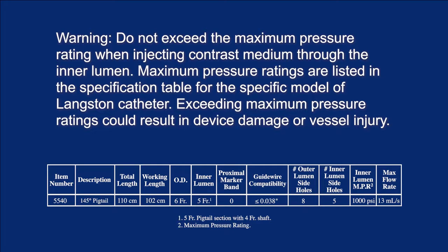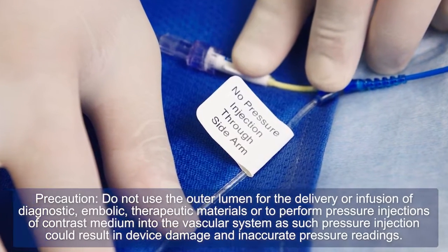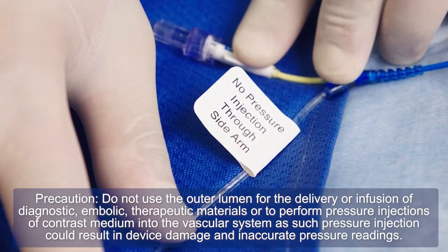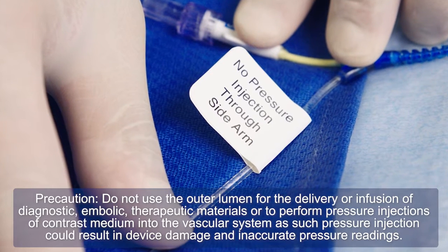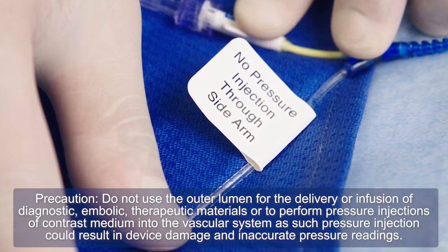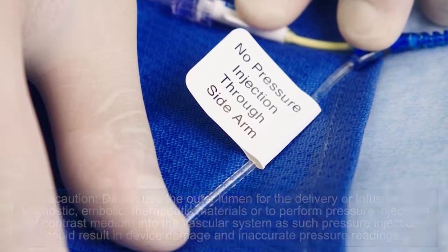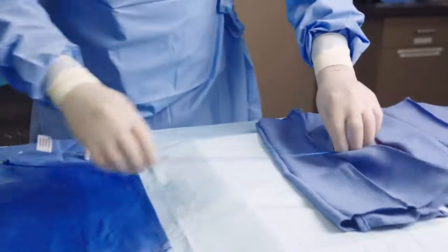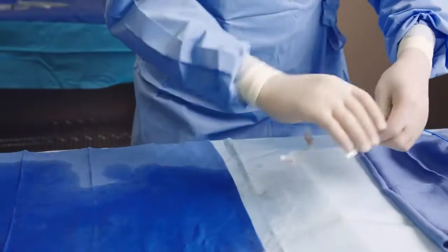Precaution: Do not use the outer lumen for the delivery or infusion of diagnostic, embolic, or therapeutic materials, or to perform pressure injections of contrast medium into the vascular system, as such pressure injection could result in device damage and inaccurate pressure readings. Dispose of the Langston dual lumen catheter following standard hospital procedure.